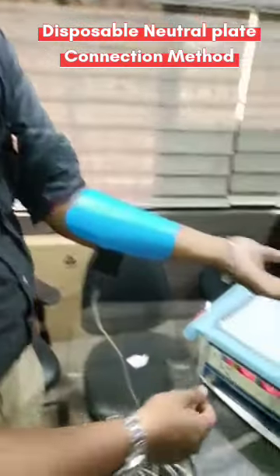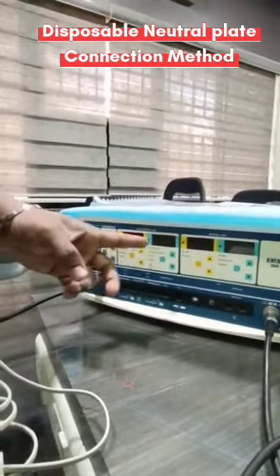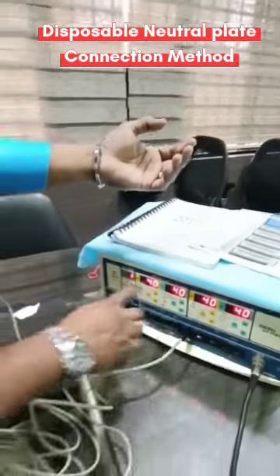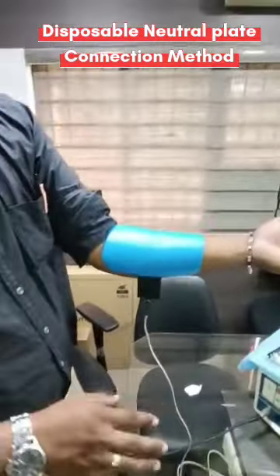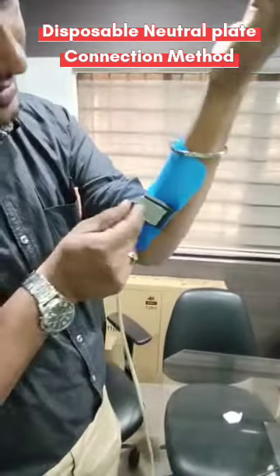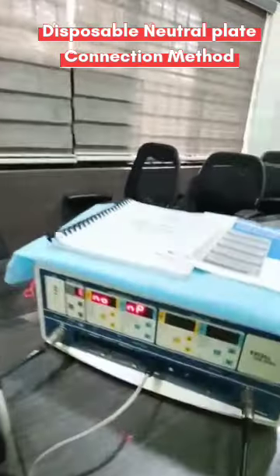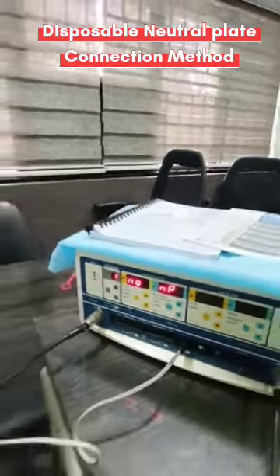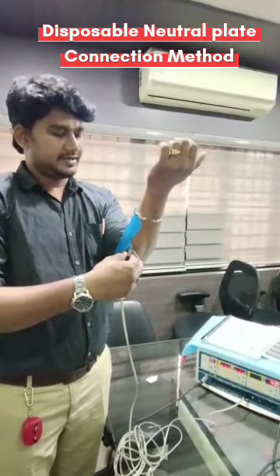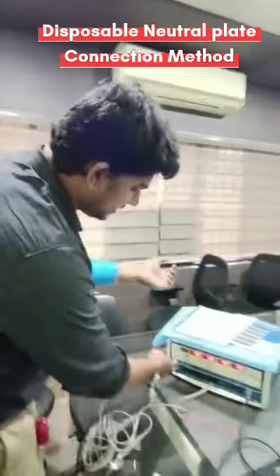See that if I remove this cable now, the machine will show 'No NP' — no neutral plate. Now I'm going to fix this plate into the machine and the error stops. For example, if the plate is not fixed properly or the clip is not done — if I open it, you can see the error. That means either the cable is disconnected or the plate is not connected properly. Just reinsert and clip it.